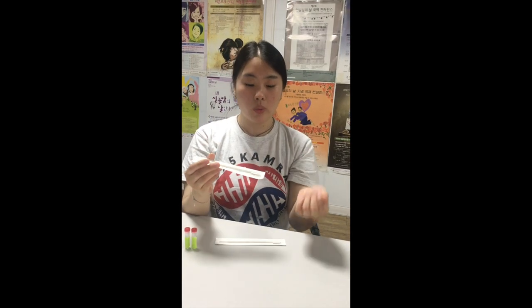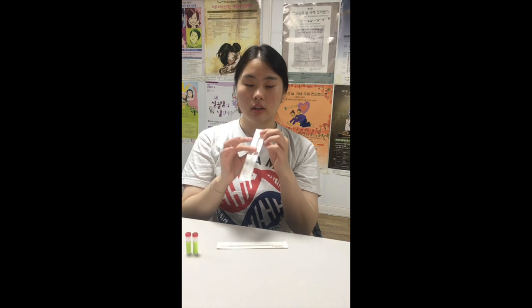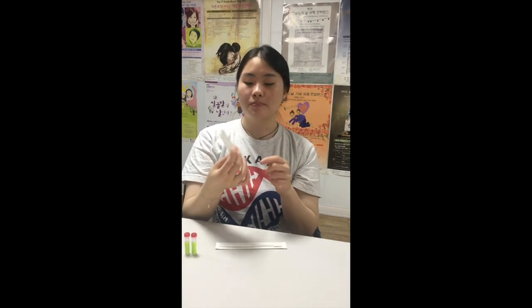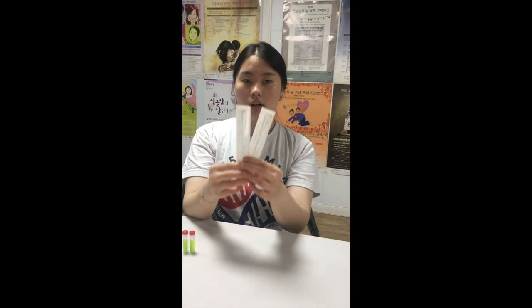When you take the cotton swab out of its packaging, you want to peel all the way to the end of the bag so that the cotton swab does not get damaged. Once you have it out, place the cotton swab on the inside of your mouth, right on your cheek. Since there are two cotton swabs, one is for each cheek — you do not want to go back and forth while swabbing.